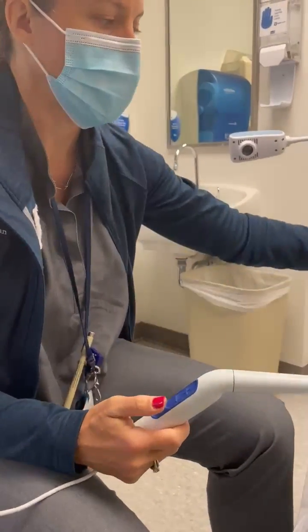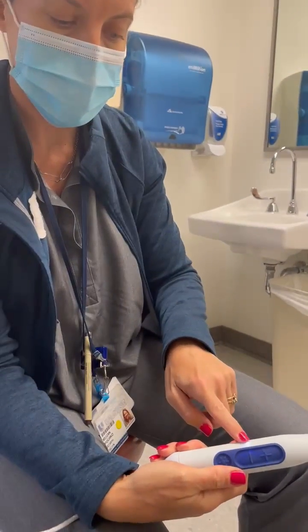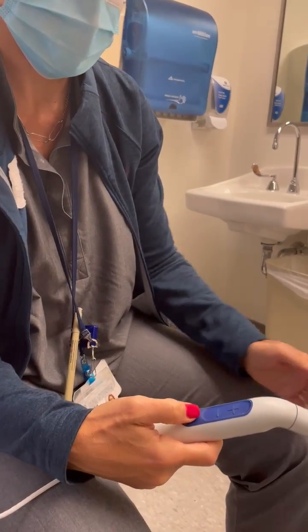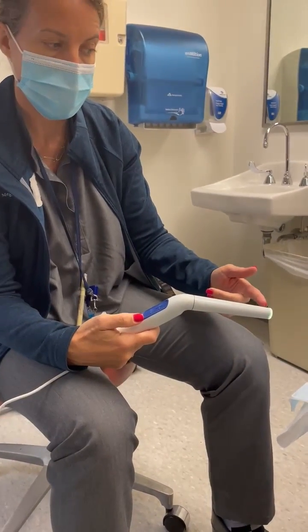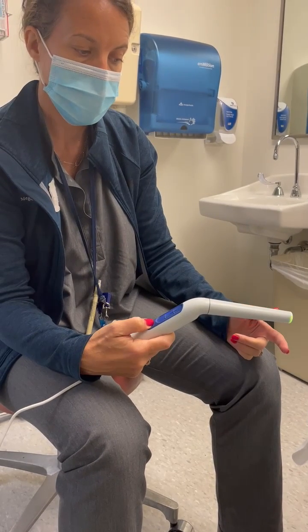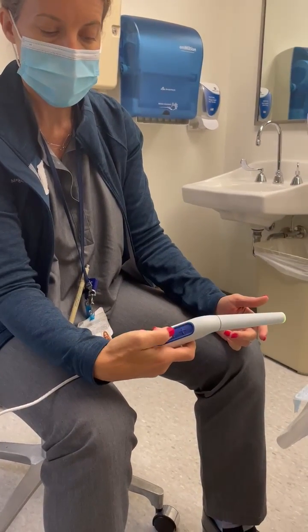To turn the unit on, you can see the unit has power with this light here. Press once to get a low white light, a second time for the colposcopic light — a bright white light — and a third time for a green filter. You can cycle through those options depending on the type of light you want.